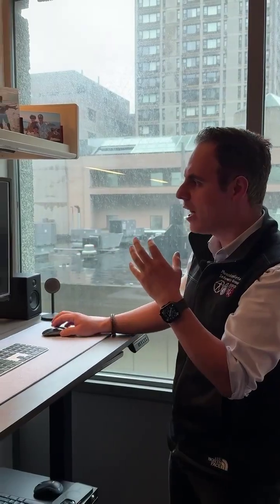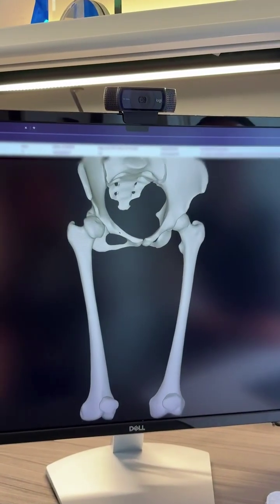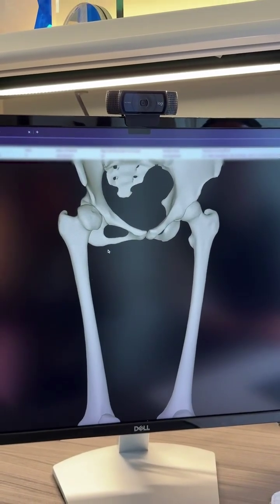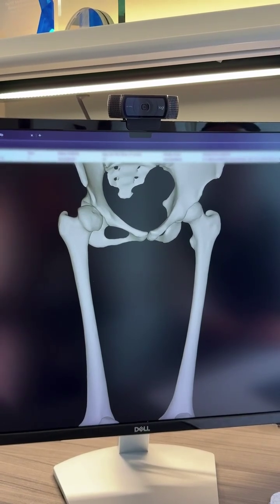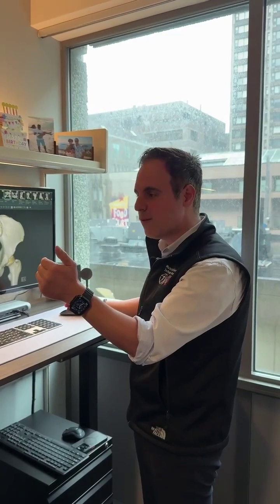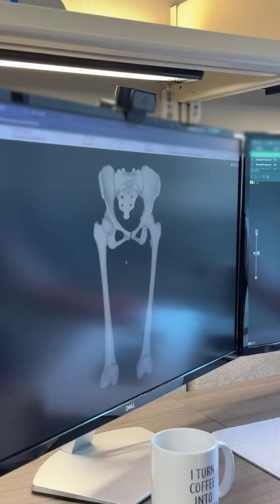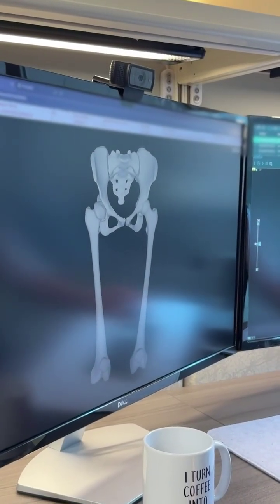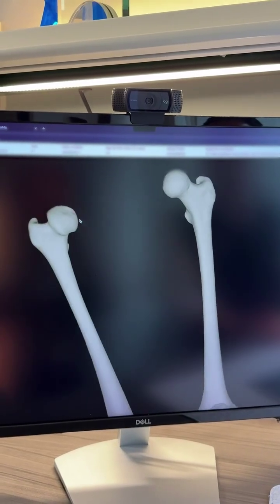So what we are trying to do is automate this workflow. This is a 3D model generated from the same CT scan of the same patient. The difference is this process takes a couple of minutes. By the time the patient finishes imaging and walks toward the clinic for their clinical visit, this is already ready. A lot of us can understand what we are looking at, and then we can point to what are the abnormalities.